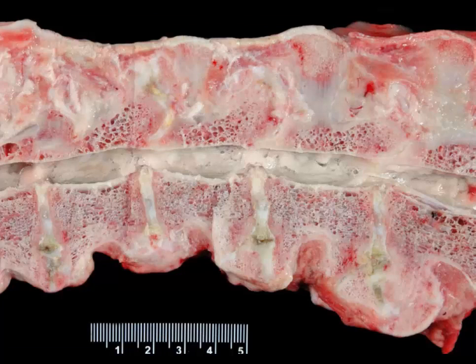Only two more in this test. Great classic lesion. See in a lot of our old military working dogs. Old dogs very commonly get it. If you had an x-ray machine, you wouldn't have any trouble with the diagnosis. I'd like two morphologic diagnoses for this slide.